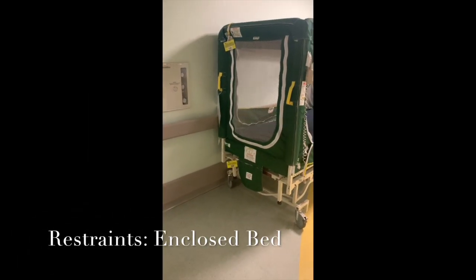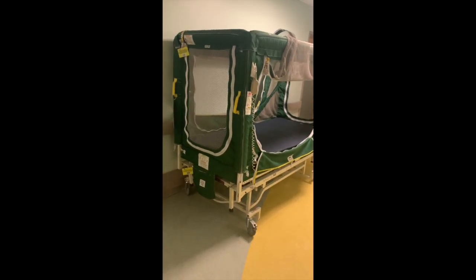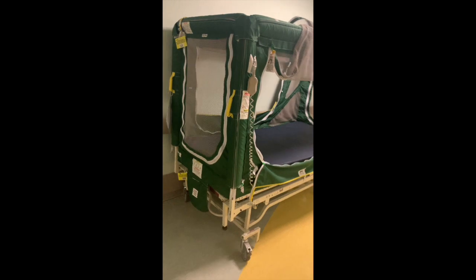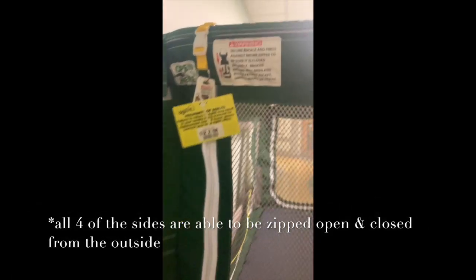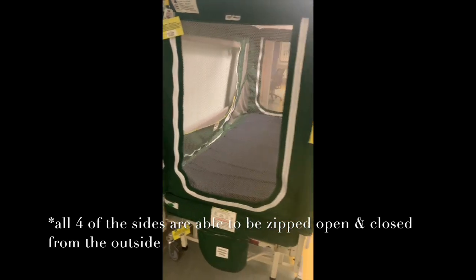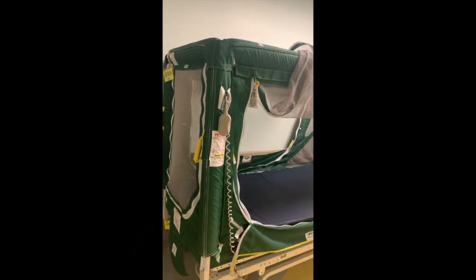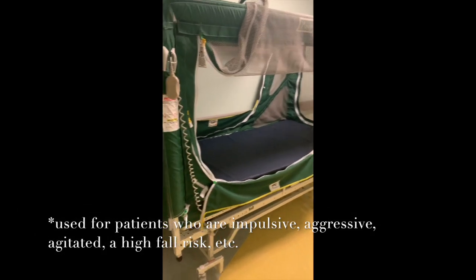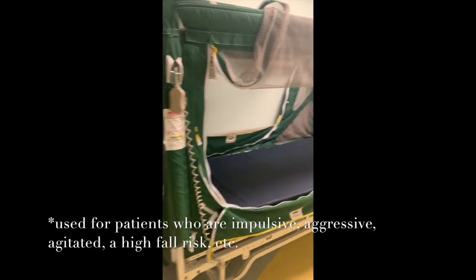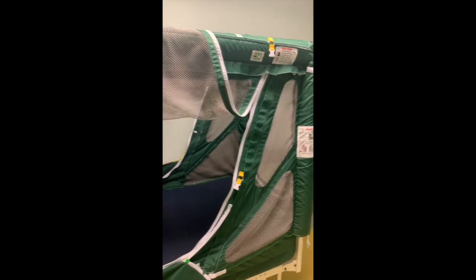Okay, so while we're talking about restraints, I'm going to show you one very commonly used in pediatrics, and it's an enclosed bed. It has zippers on all four sides that snap right up here into little clips. This is used for patients who are impulsive, a very high fall risk, and who just really need extra monitoring. So staff are the only ones allowed to unclip and reclip, as well as zip up the sides of the bed for the patient's safety.